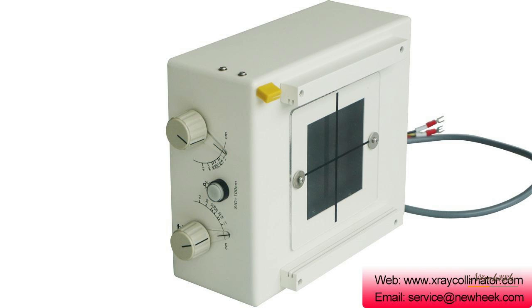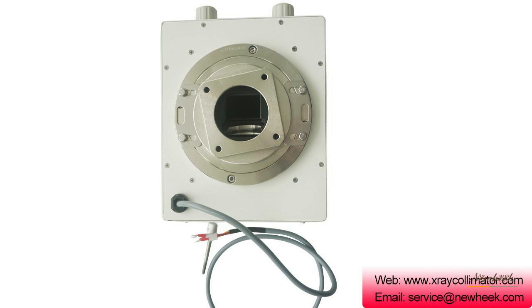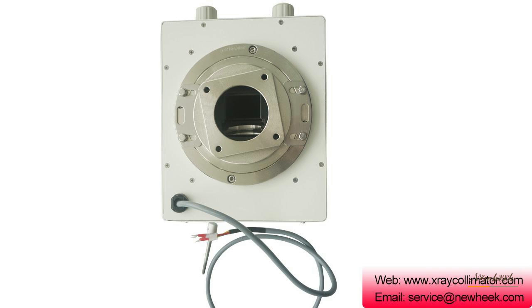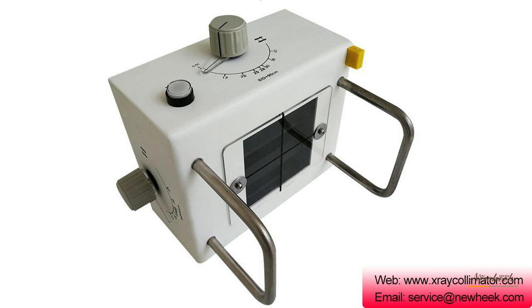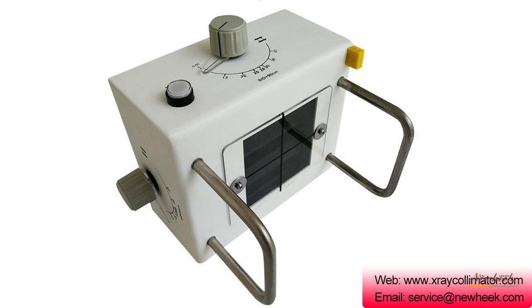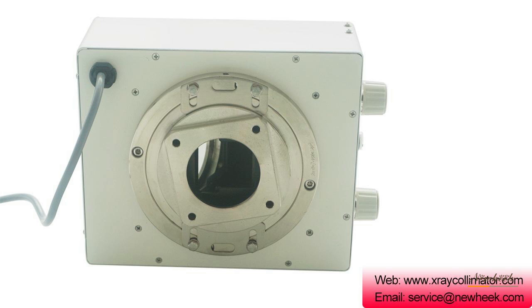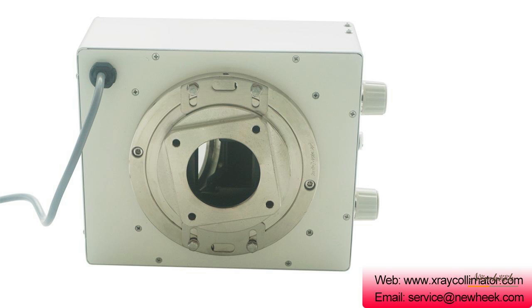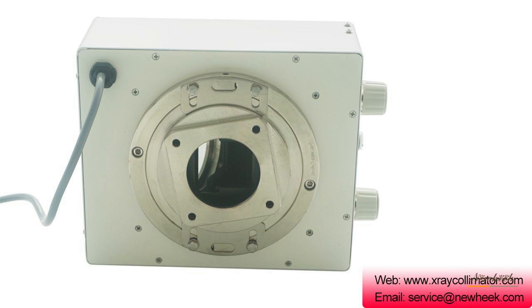X-ray collimators can be divided into various types: manual and electric. A manual X-ray collimator uses lead-shaded blades that can be opened and closed. An electric X-ray collimator is often used in fluoroscopy for remote control, and is an essential component for remote control of gastrointestinal beds.